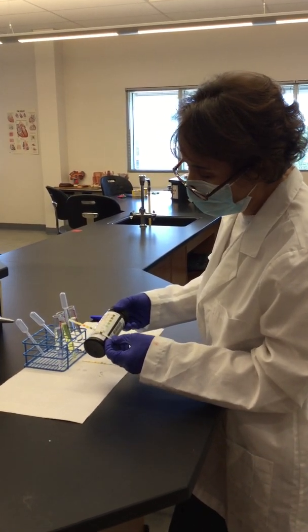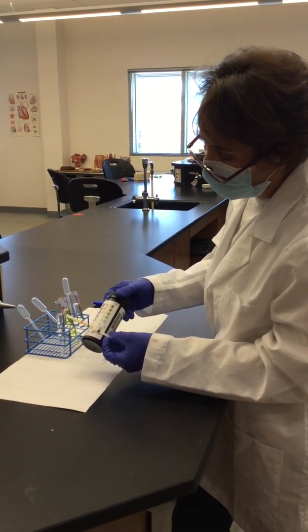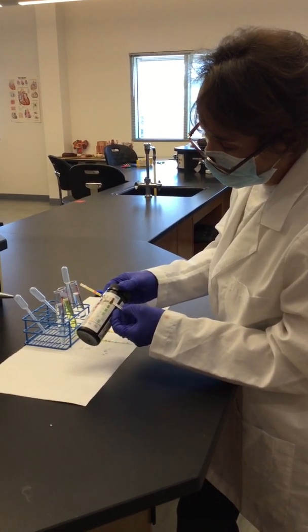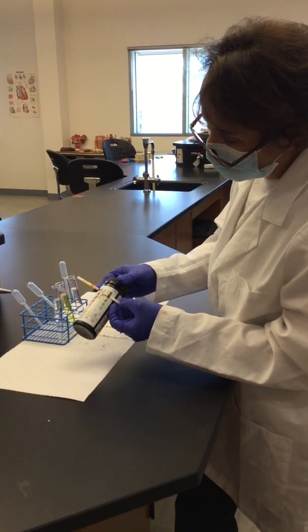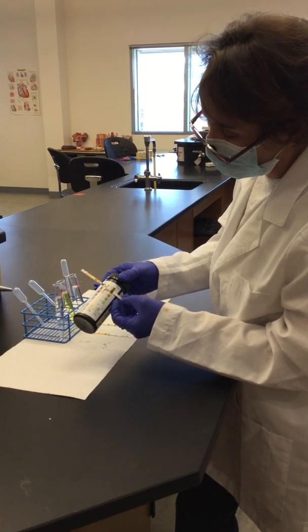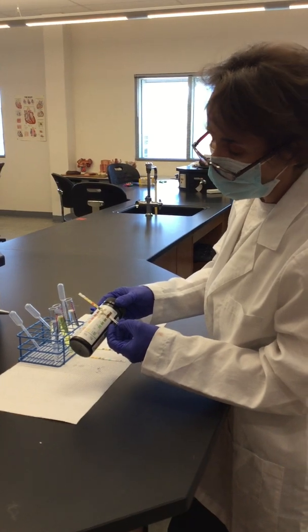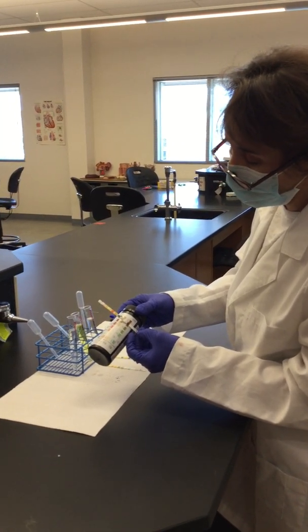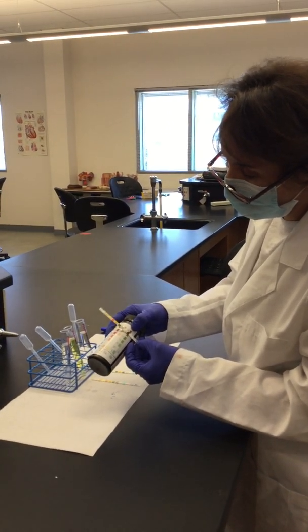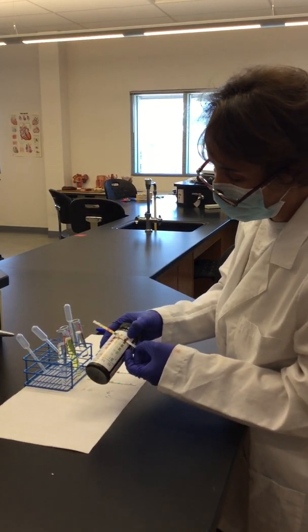So I start here on abnormal A, and if you see, it has this brown color for glucose. So if I scroll up, I can find that this abnormal sample has 2,000 milligrams per deciliter of glucose. So basically, it's 2 grams of glucose per deciliter, which will be 100 milliliters. So that's a lot. What I can interpret in here is that possibly this sample comes from someone who has diabetes.